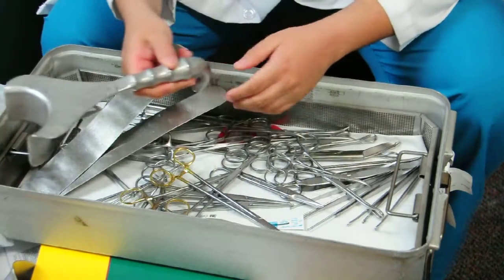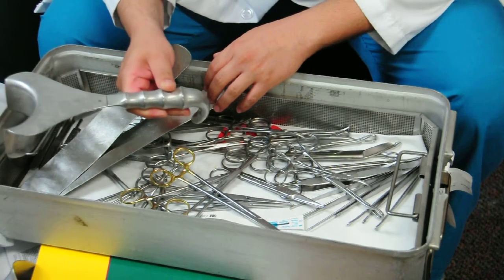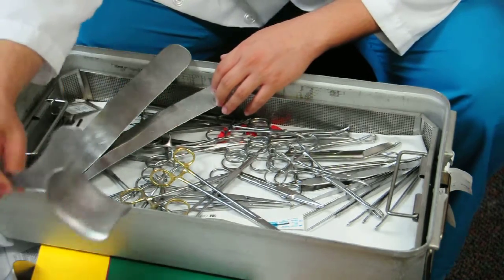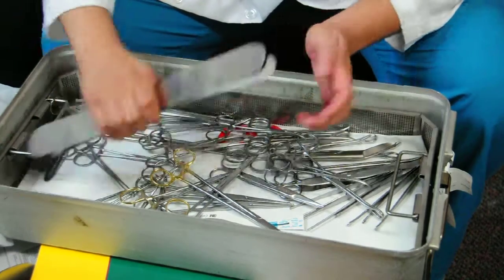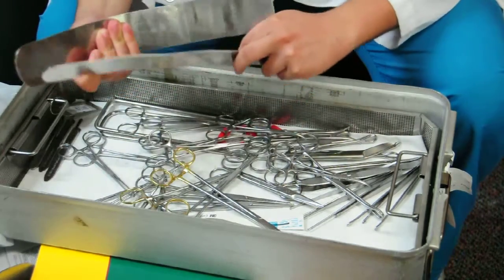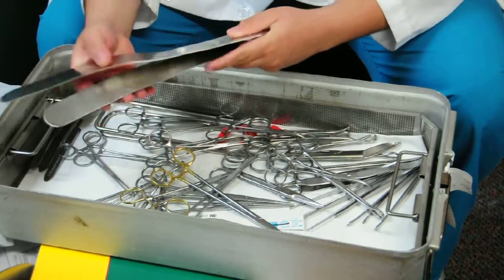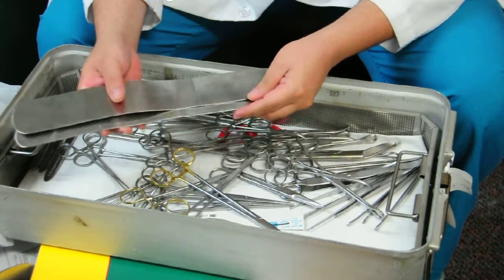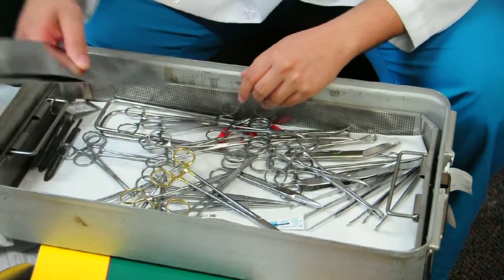This is a bladder blade, and this type we use during a C-section. There's a different kind of bladder blade which looks similar and is used for GYN surgery. These are malleables — they're called malleables because they're malleable. You can use them as a retractor, but they're generally used to hold bowel down when you close fascia, and they can easily be retained, so be careful.